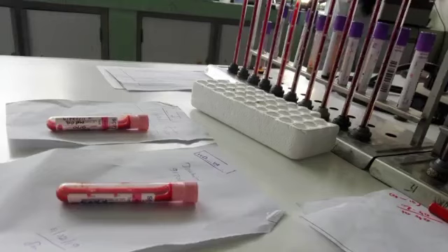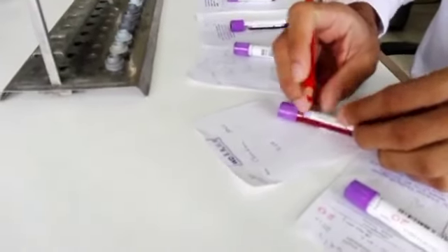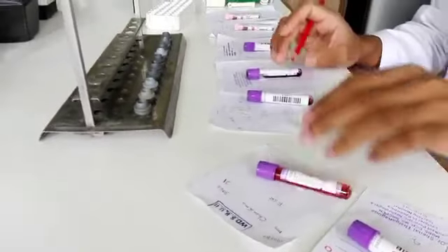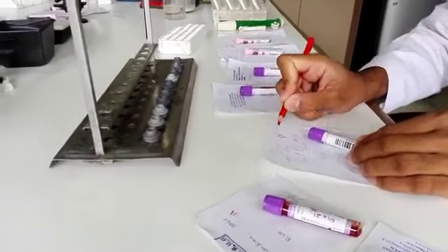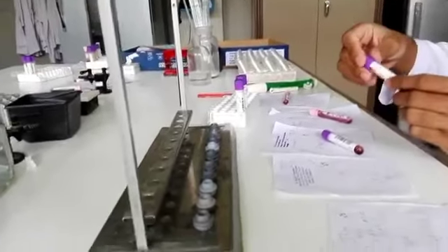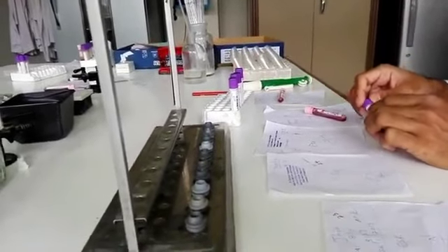Normally in the hospital setup, these blood samples are collected into the anticoagulated blood tube and sent to the laboratory along with the request form. When we are receiving the sample, we should check the samples for clots and we should check all the patient's details whether they are tallying or not. If the patient details are not tallying or if the sample contains a clot, we should reject the sample.